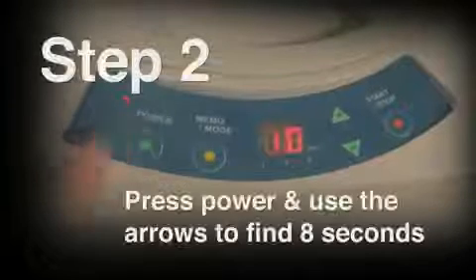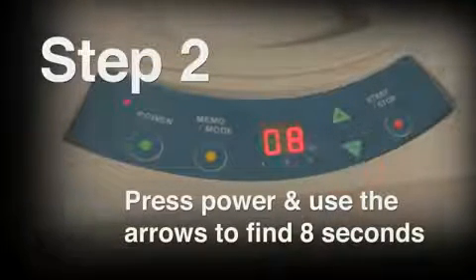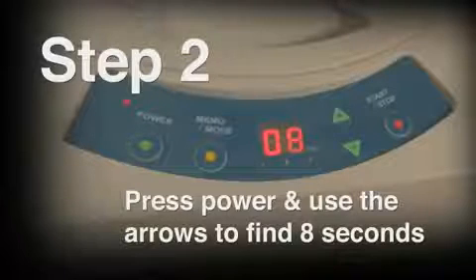Turn on the main power switch on the back left side of the machine. Press the power button on the front left side. The mixing times can be adjusted using the plus and minus arrows. Eight seconds is the optimal mixing time for Impressex Alginate.